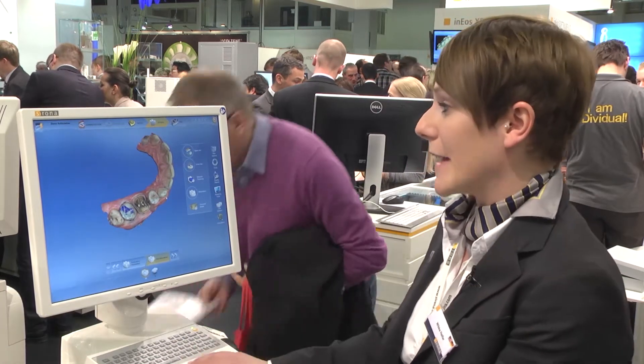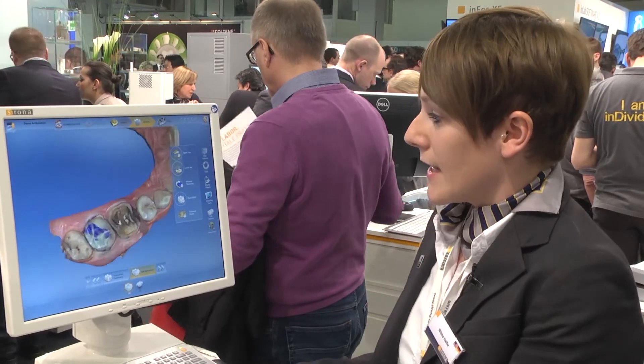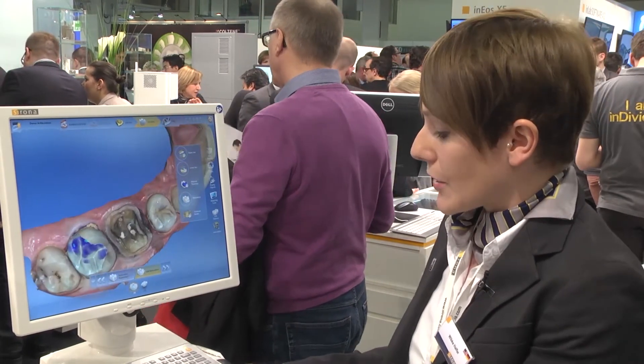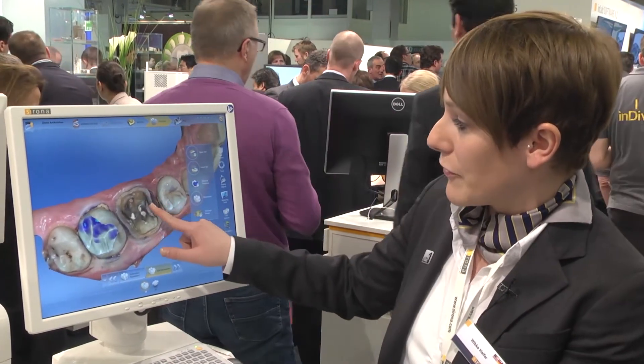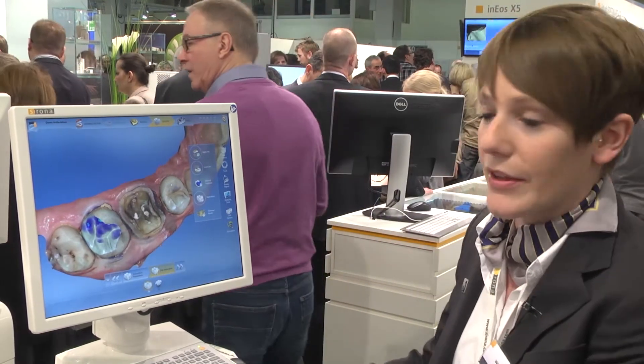Here you see the third advantage of the new CEREC software 4.2: the so-called virtual articulator. This is a real Omnicam case, and you can see it's colored. It's very interesting to see with the Omnicam, and all this information you can get.